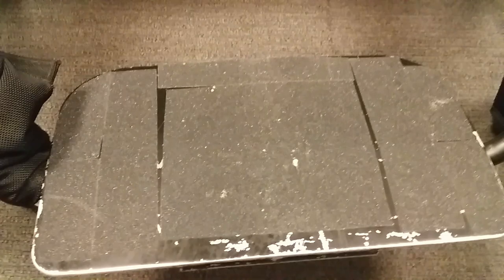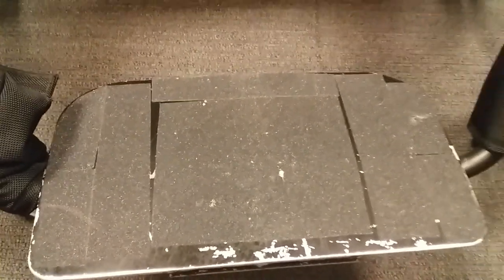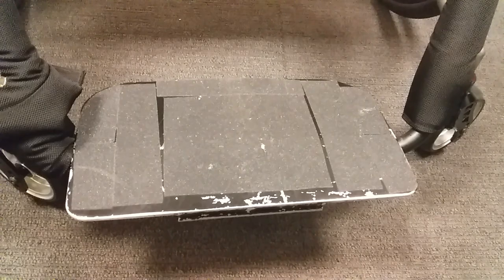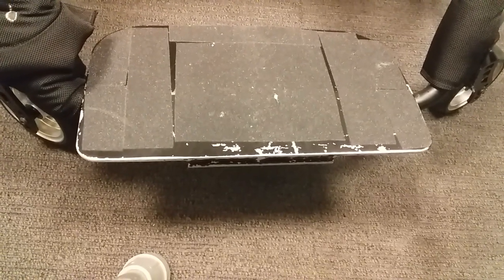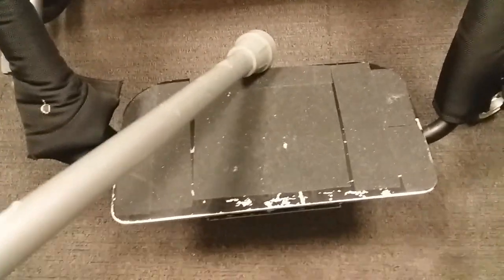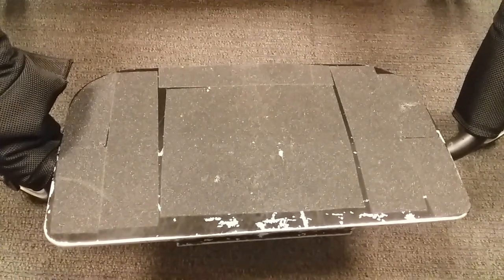On the top I've got a skateboard grip. I bought this after watching Wheels to Walking — I think that's his name. He gave me some good ideas about my wheelchair and I thought, hell, that's not a bad idea. Originally I had one big piece in the middle but it had problems so I had to cut it into smaller pieces — as you can see I've made quite an artwork. There's also a hole just there, and that's for the freewheel. I don't use the freewheel because this chair wasn't made for it, which is really annoying.